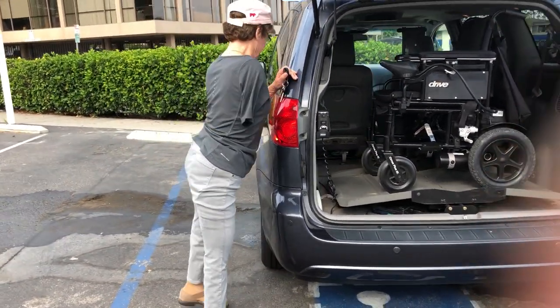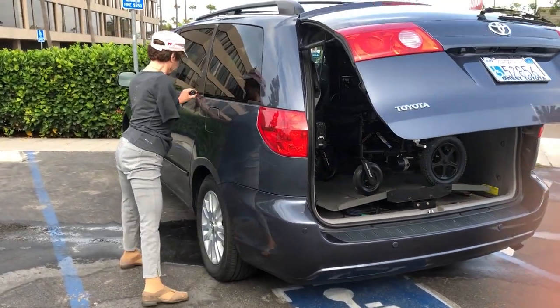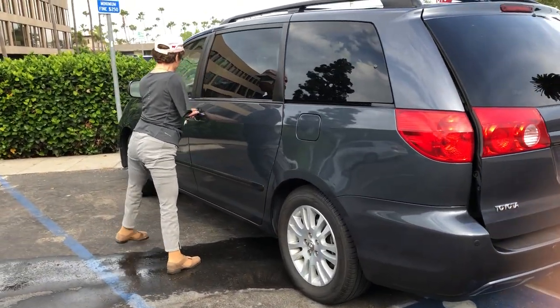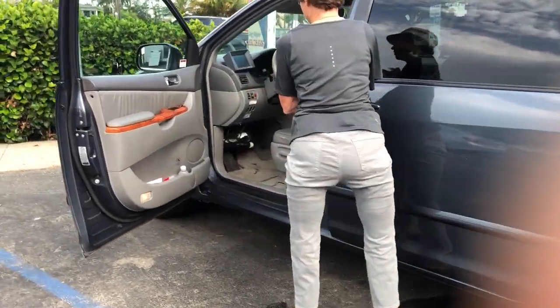I think this part's amazing too. And then I can close it with my... you know what, I'll start my car — you'll like that too. Come over here and we'll just keep going. I'll show you how I drive. Come in here and look at how my car is set up.